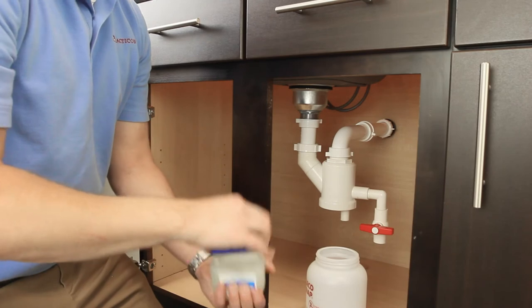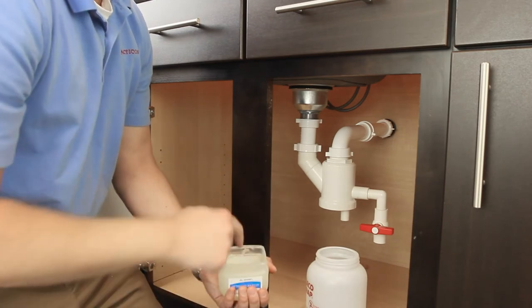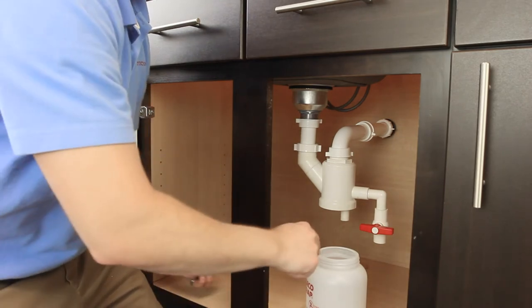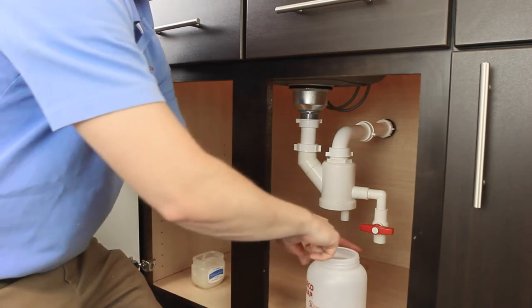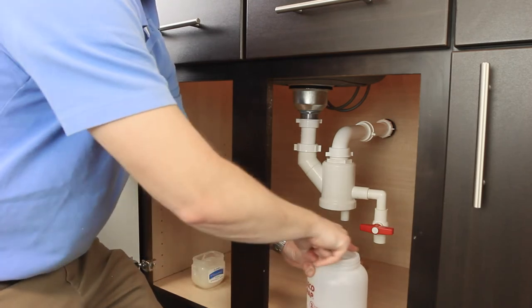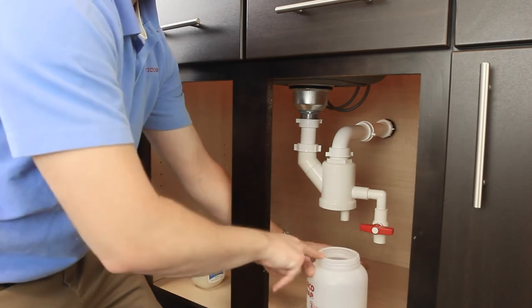Before installing or replacing your GlecoTrap replacement bottle, we recommend lubricating the rim with petroleum jelly. This will reduce torque and friction on the gasket. You'll also want to replace the gasket after the fifth or sixth change.